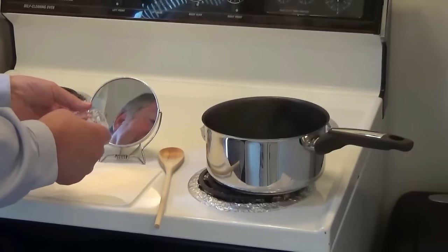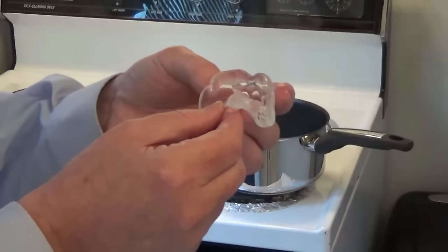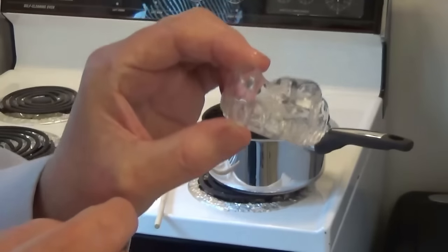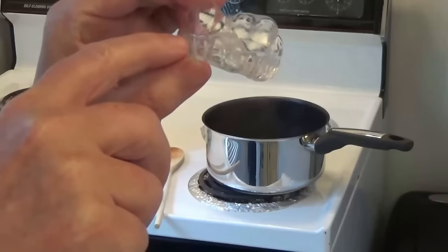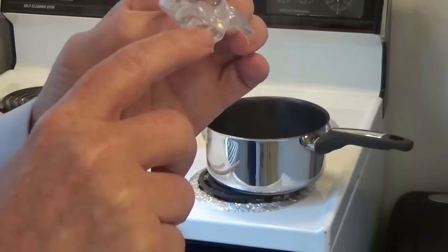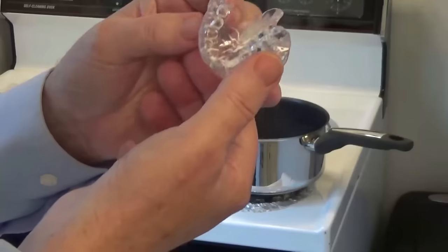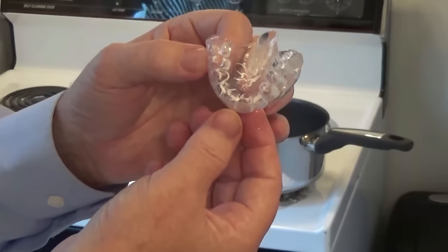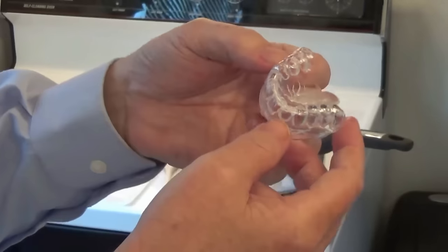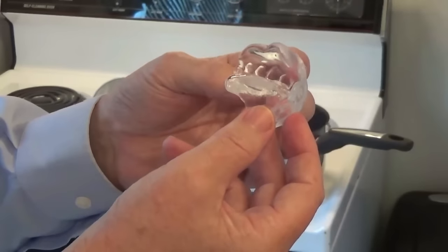As you can see, I have a really good indentation of the teeth. Let me bring it down here — see this? Notice we have a really good indentation of all the upper teeth as well as the lower, right there. This is exactly what you're aiming for. You want to see good indentation on all the separate teeth, which means now you have a good mold.